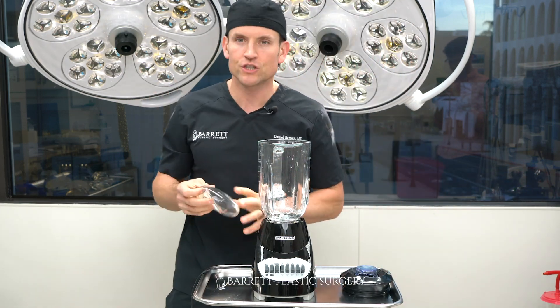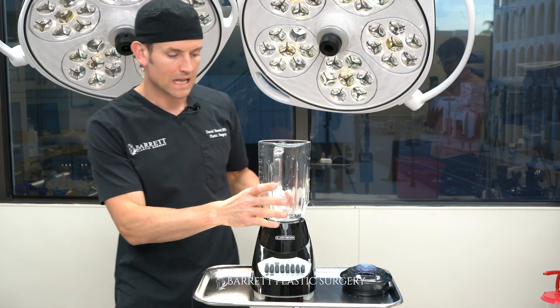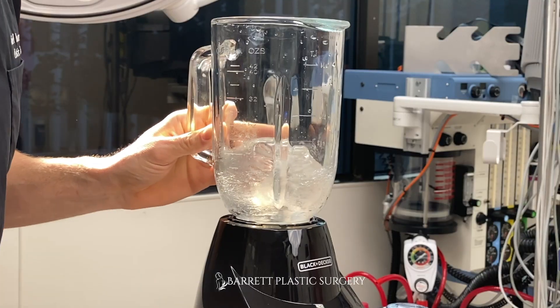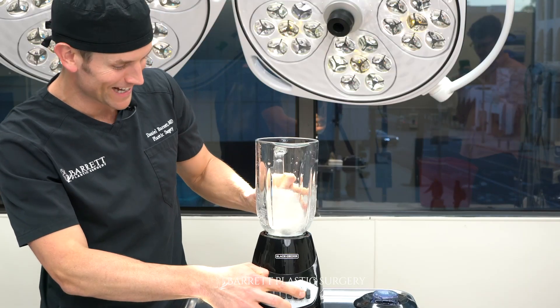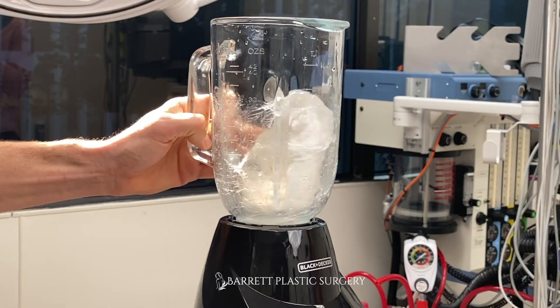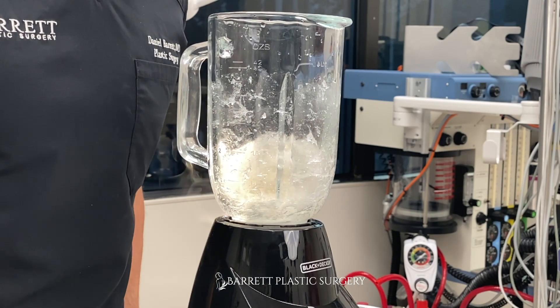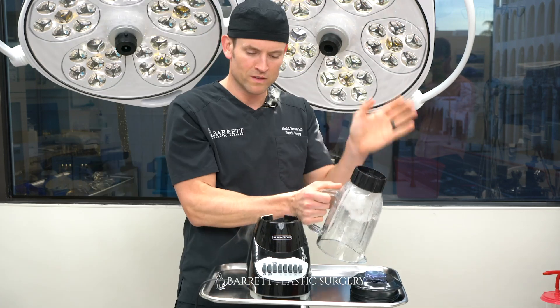We are on to the silicone implant, you guys. Just for added fun, we're going to take the lid off and see what happens. We're going to get this thing fired up. Oh my goodness, it's putting up a good fight. It's like cotton candy. Have you seen this? The machine is smoking now, so I'm going to turn it off. But I think it's safe to say that it didn't make it.